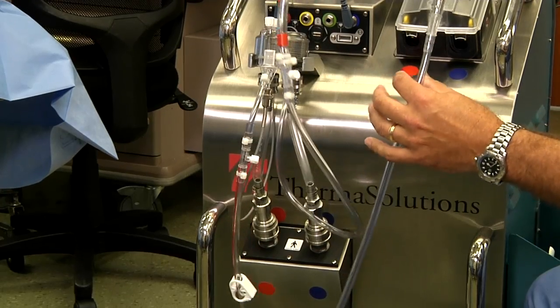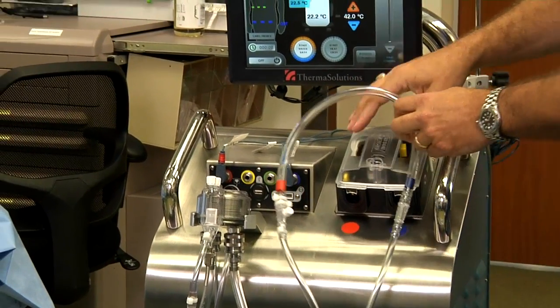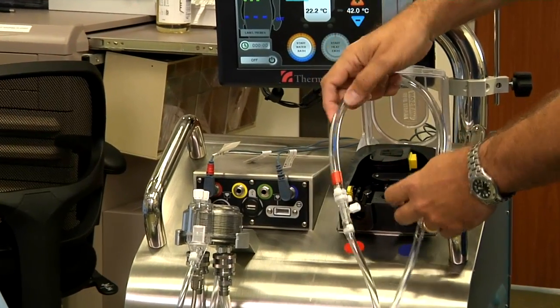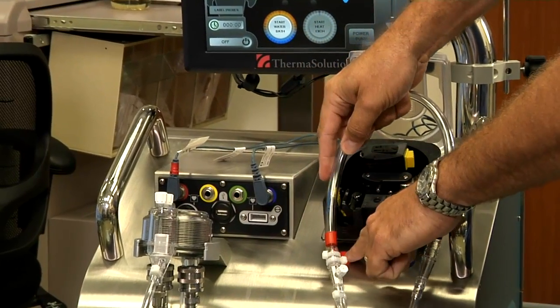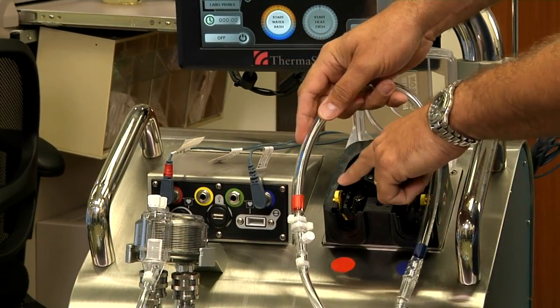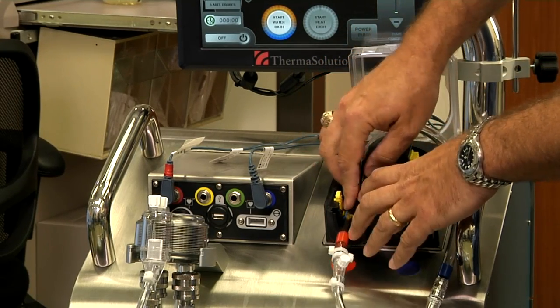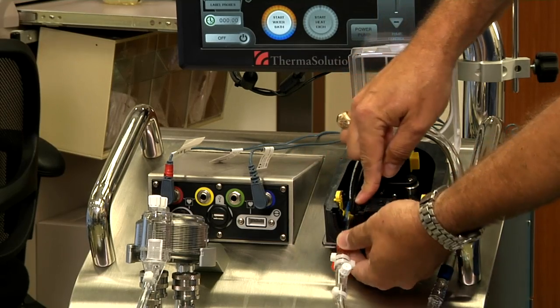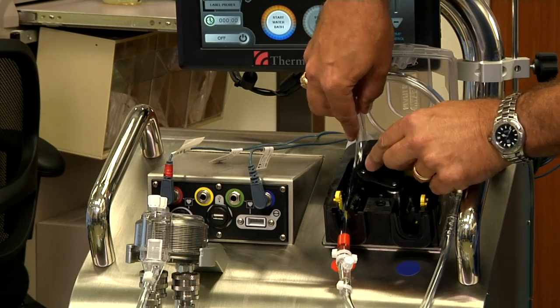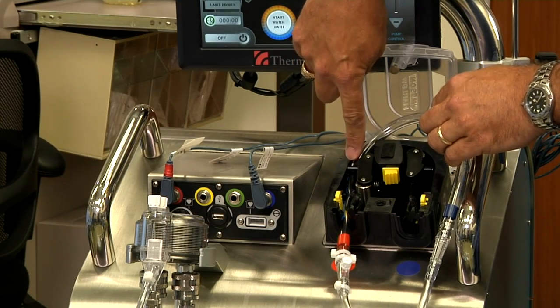The pump tubing is pulled up and will be placed in the pump housing. The lid door to the pump is opened. Red matches the red and blue matches the blue. A spring clip is pulled backwards and the tubing is secured inside. The tubing is then threaded through the pump — there are guides on the pump head.